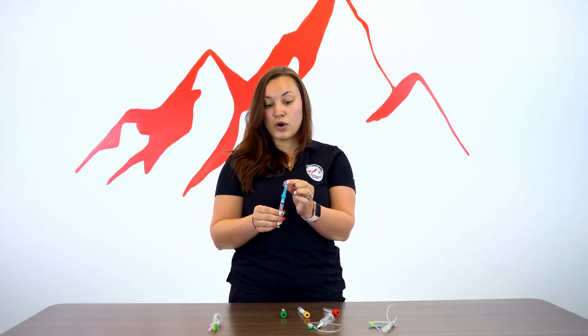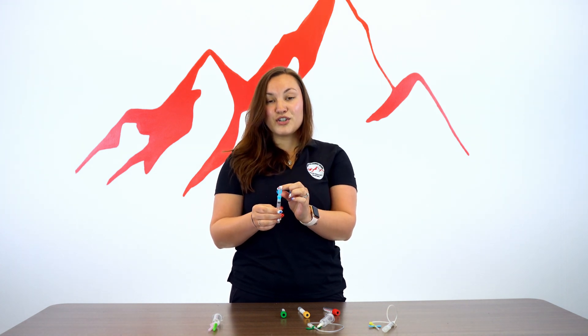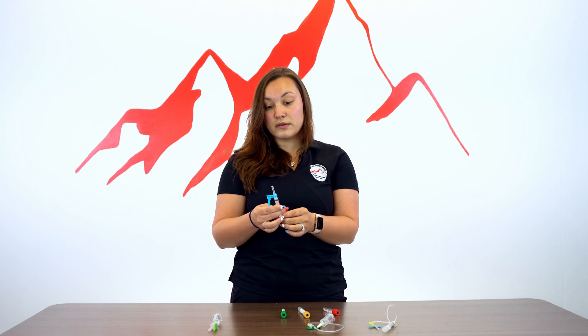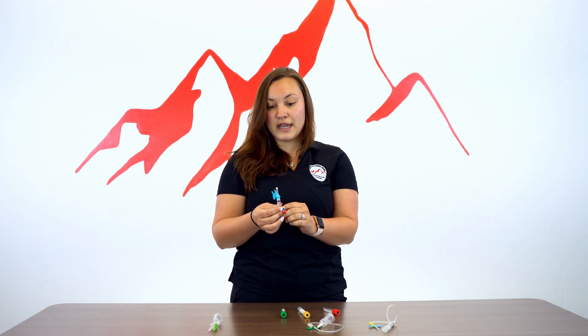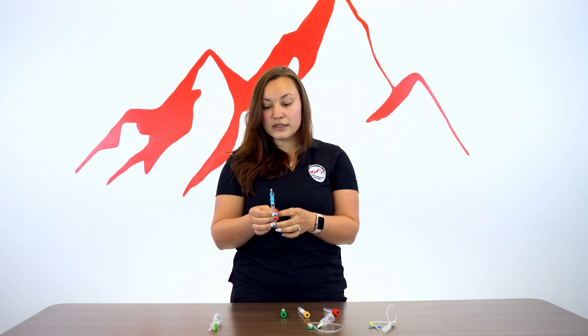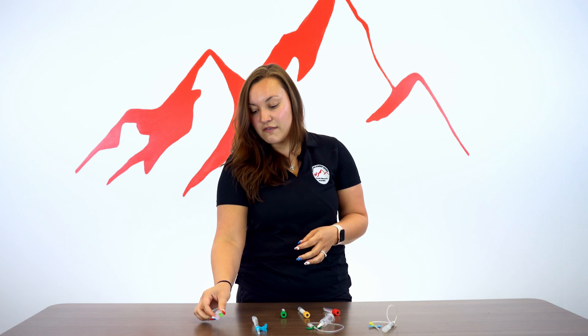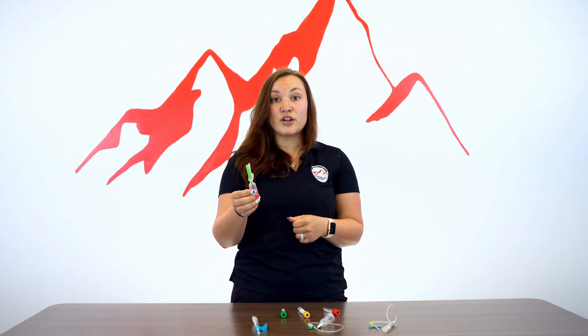The hypodermic needle gives you a lot of control and will also be used for patients who have small or possibly difficult veins, as well as pediatric patients. The evacuated tube system will be used for really large veins that are easy to locate and easy to palpate, and where you need a lot of samples.